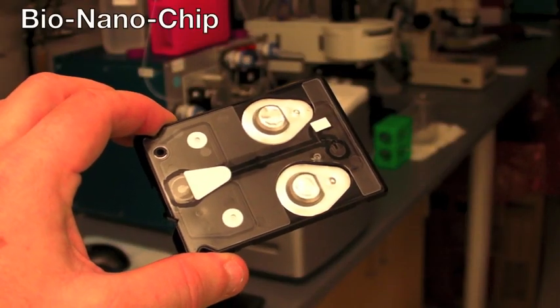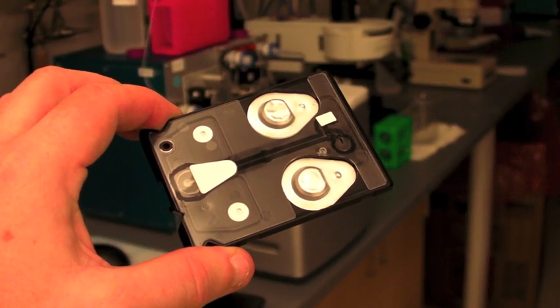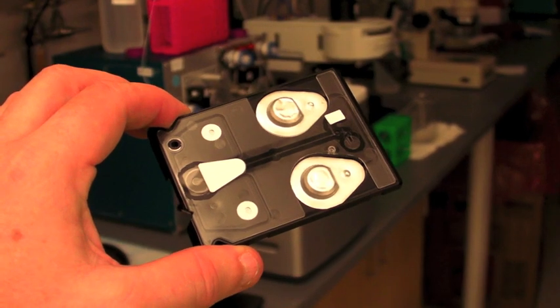These bio-nanochip systems are programmable. Like the computer chip where you bring in software, we can re-task the core infrastructure, this diagnostic platform to go from one disease to the next. This has empowered us now to move quickly and efficiently into six clinical trials. This is the only place in the world where this is happening right now.